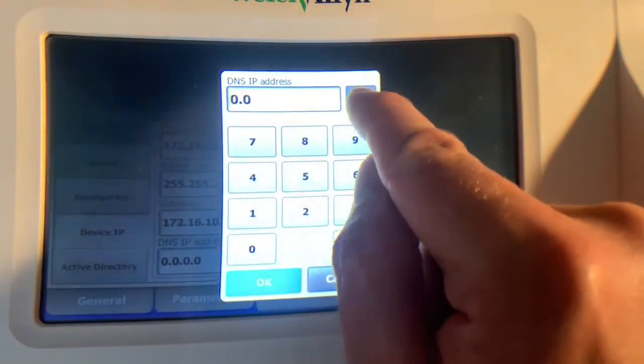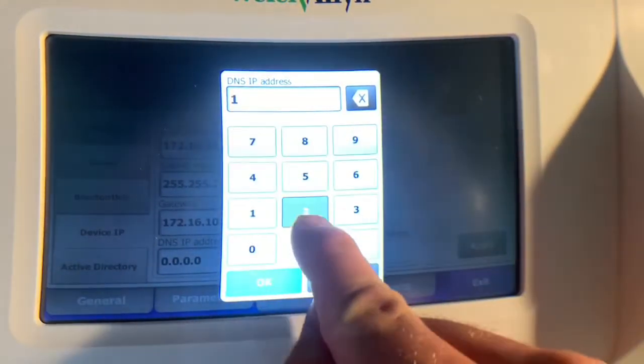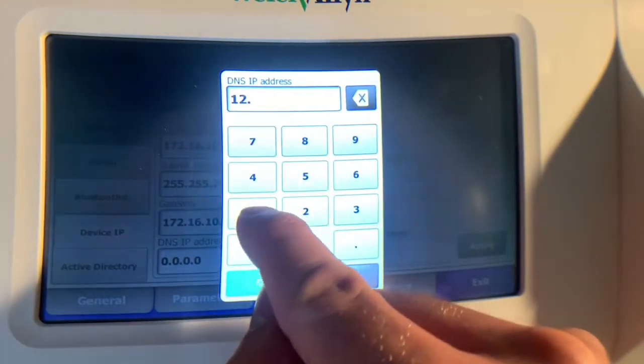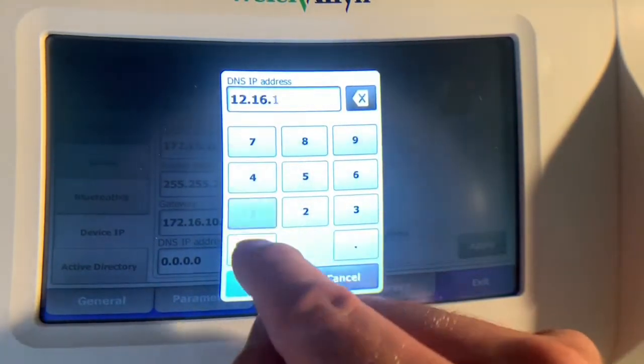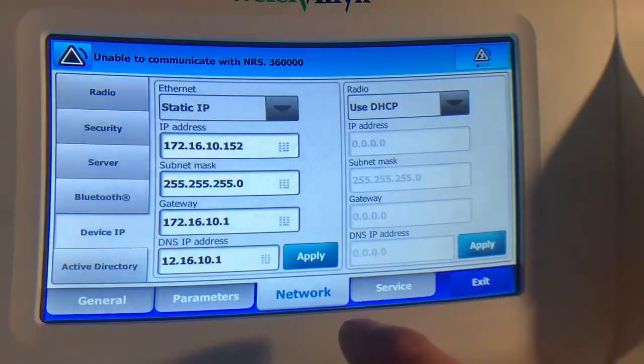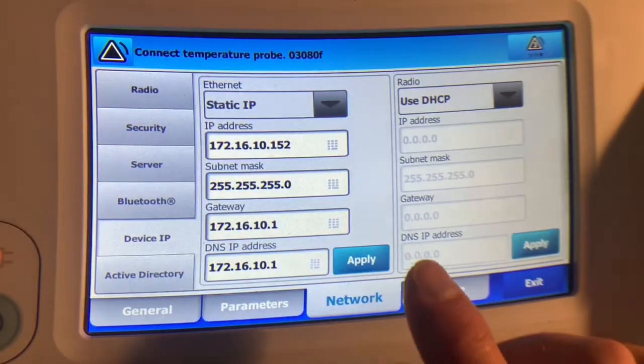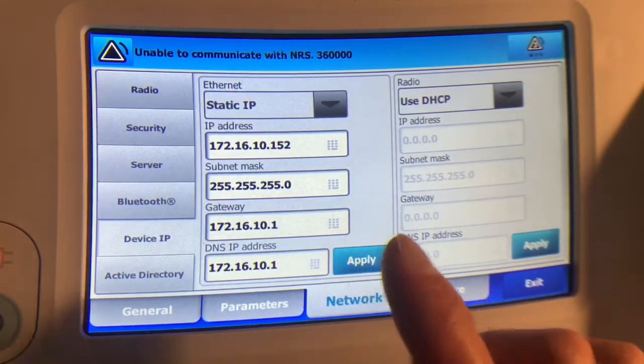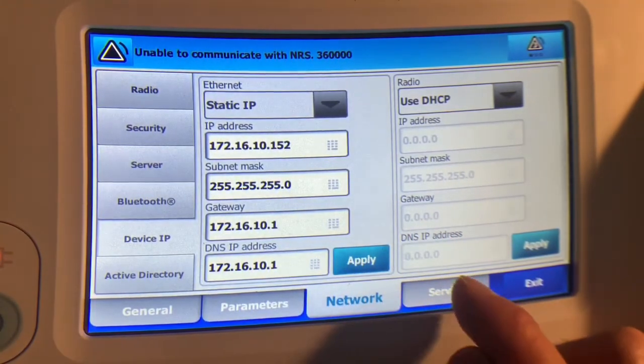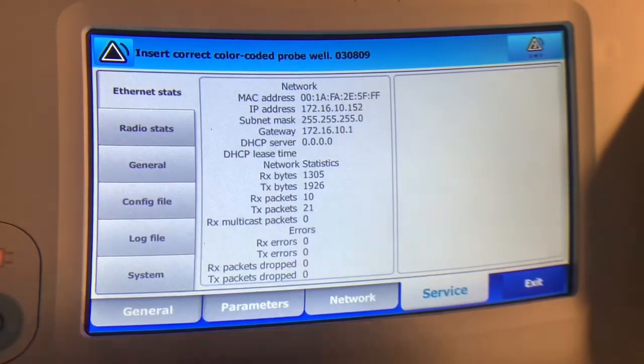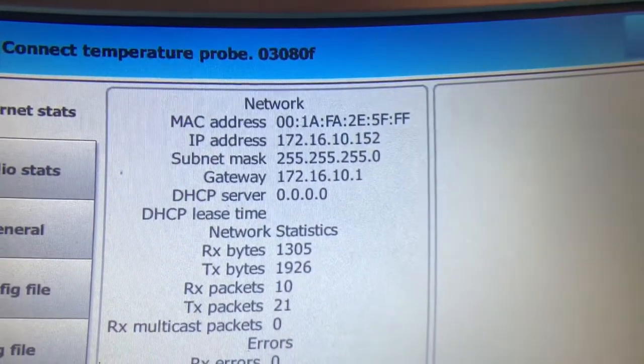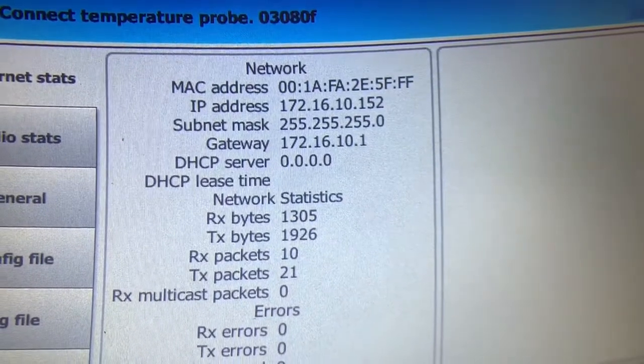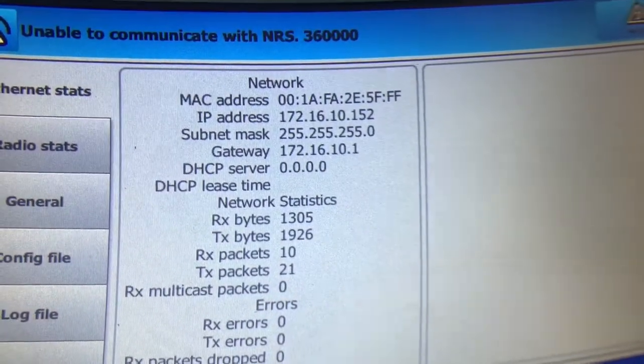And DNS, I also have my own internal DNS. I'm just going to do that. And once you hit apply, even though it doesn't really look like it, it's changed its IP address internally. If you go to service you can see here it's changed its current network information to match what we entered in the last page over.